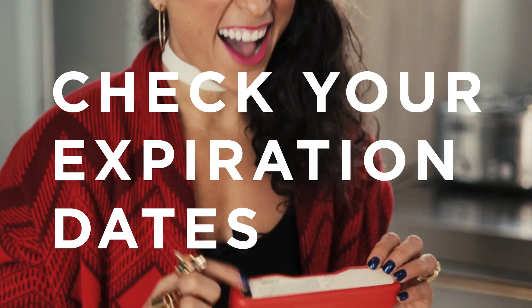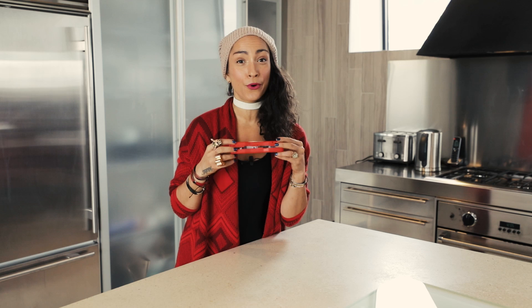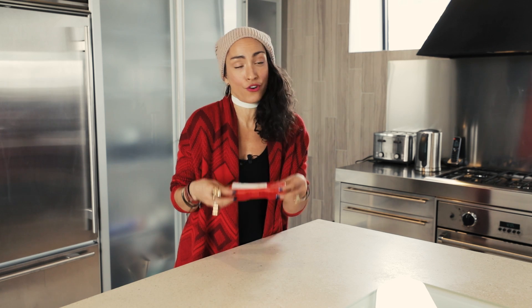So that's glucagon. You want to make sure it's not an expired glucagon shot. I just realized in filming this that mine is expired — so take your expired ones and practice and show folks how to do it. Get comfortable with it, because this is really important; it could actually save your life.